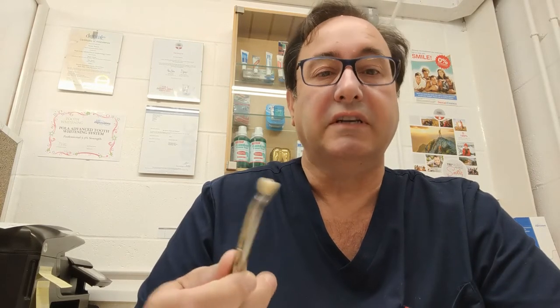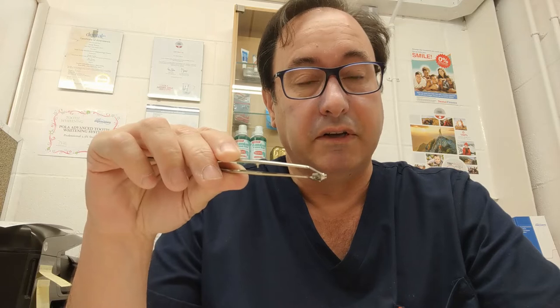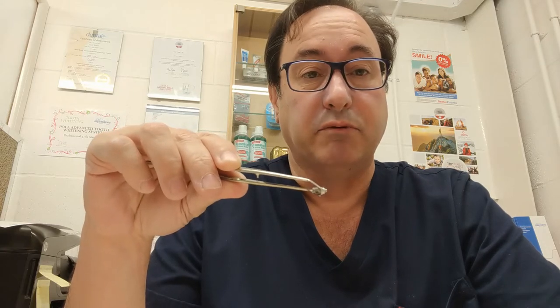I don't have a non-sterile implant to show you — we might find one in a future video. But assuming that you've had the implant placed and it's bonded, which generally takes about three months, the next step is to put a false tooth on it. The false tooth, as you can see, is hollow and fits over the top of the connector. The connector connects on one side to the implant and on the other side to the crown.